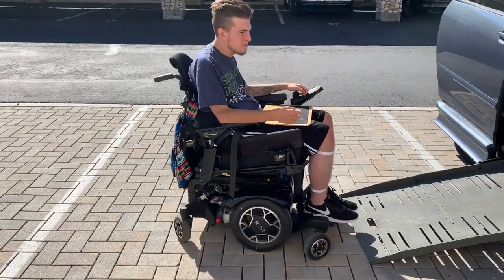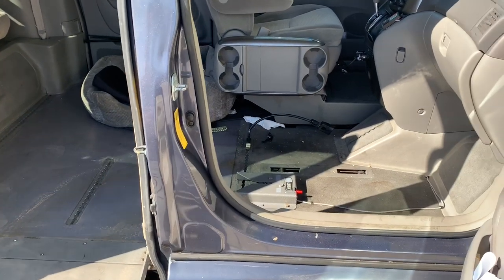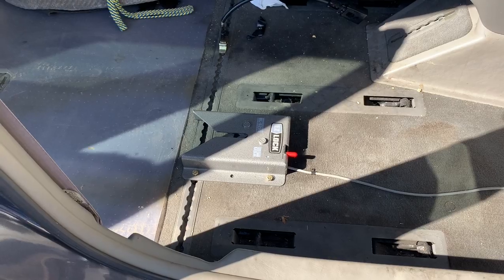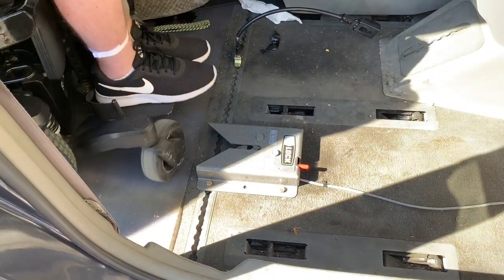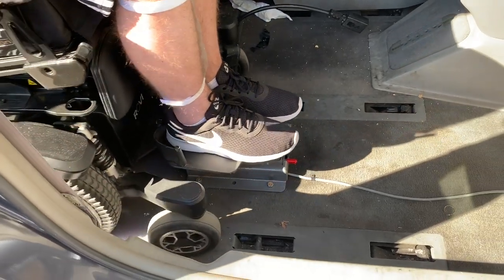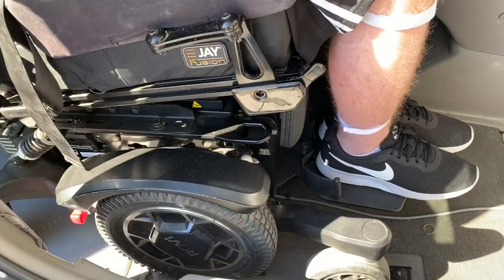So I finally got this installed and I wanted to show you what it is. If you come over here, the device looks like this in the car. I basically can just roll in now and then I kind of have to line my wheelchair up to get it locked in — but boom, when you hear that click, that means I'm locked in and right now I'm really secure.